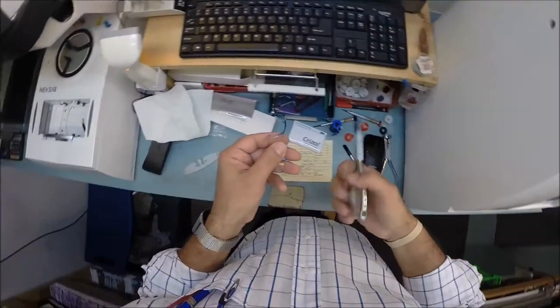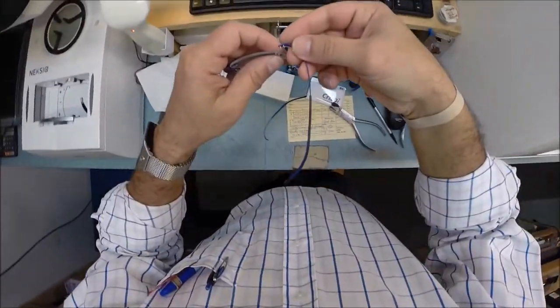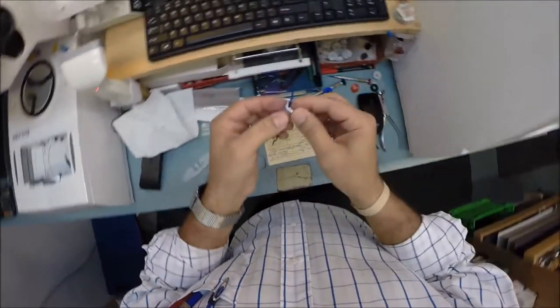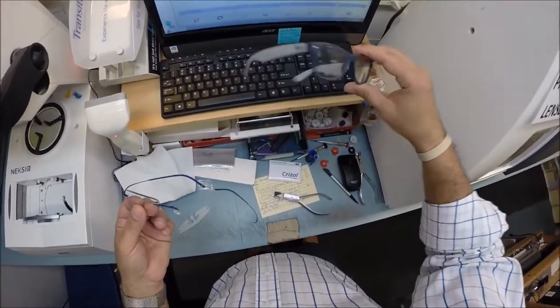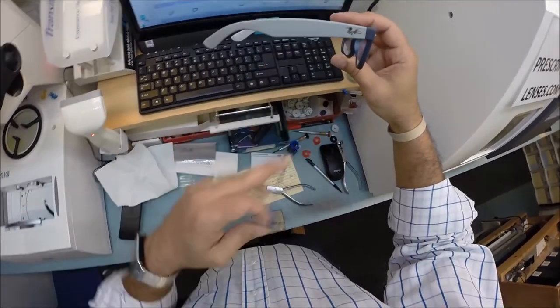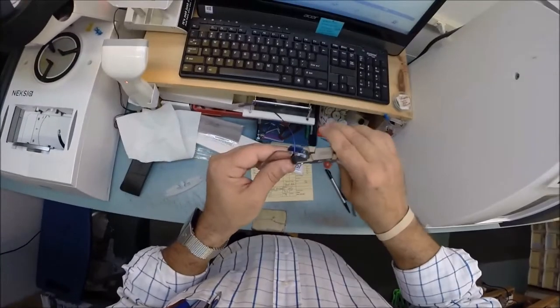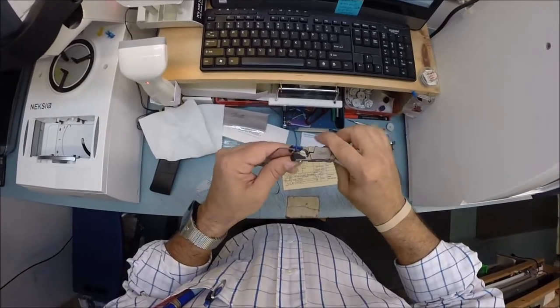That's in there good — let me give one more crimp just to be sure. That is good. Now I'm going to go ahead and apply the right temple. Make sure that is the right one — it is embarrassing to do the left one upside down, so pay attention. On goes the right one. You can barely see — you can tell this is my new prescription, I can't wait to get it. I need that extra magnification. I have these big strong lenses here. If I have to tighten a black screw in a black frame — this is actually my Ray-Ban 811 blue rubber. I wore this thing into the ground. I thought I was ordering white replacement temples from Italy but they sent me gray, so I've got my blue-gray one-of-a-kind custom pair.